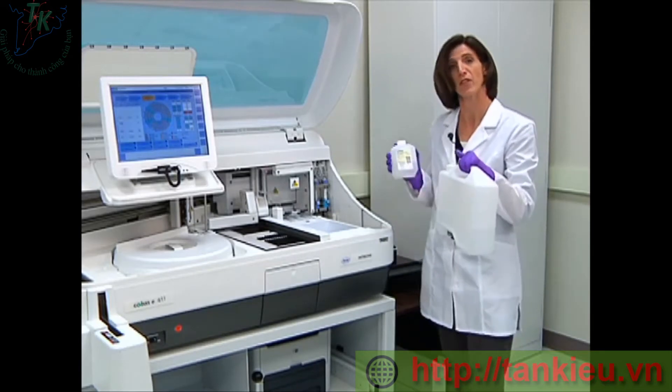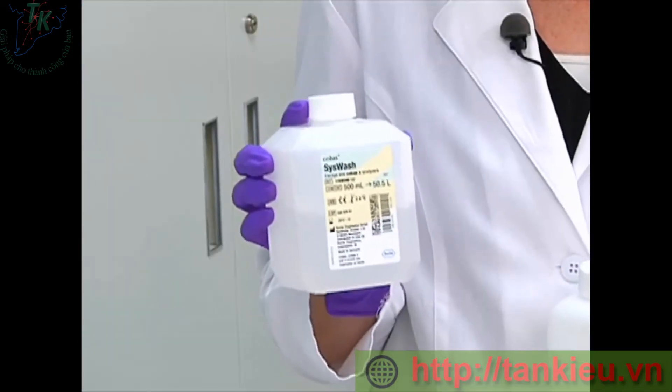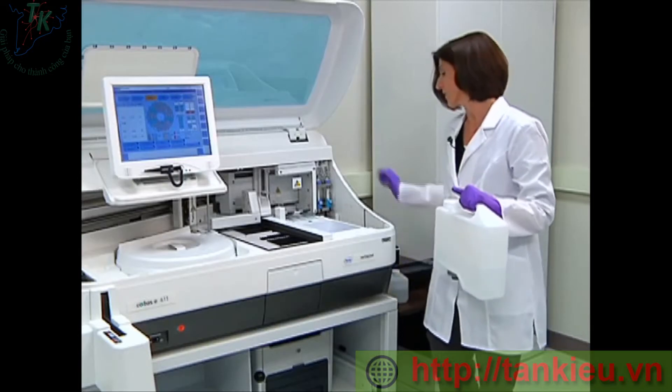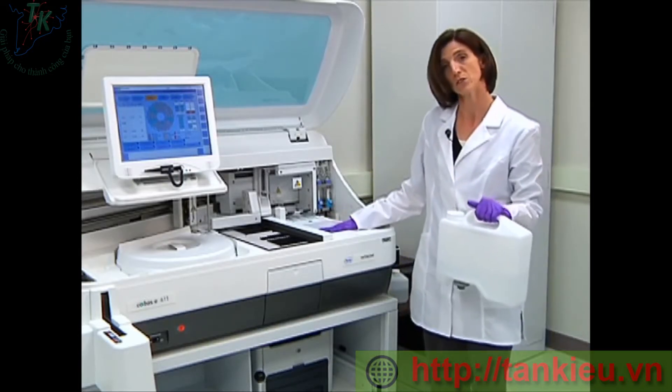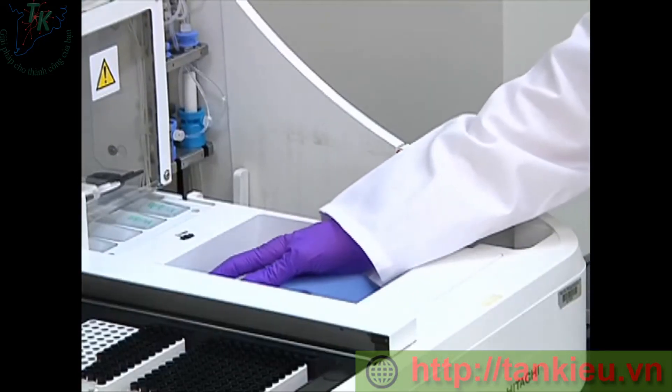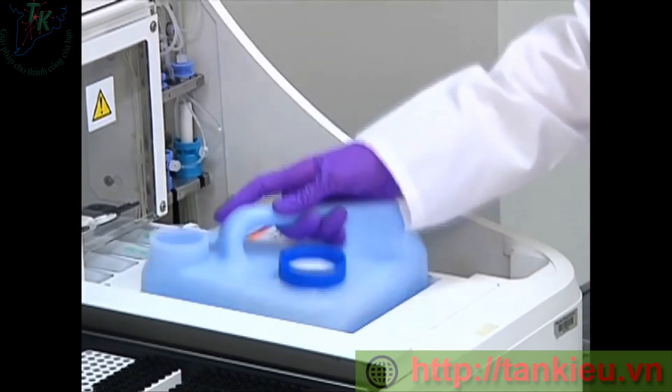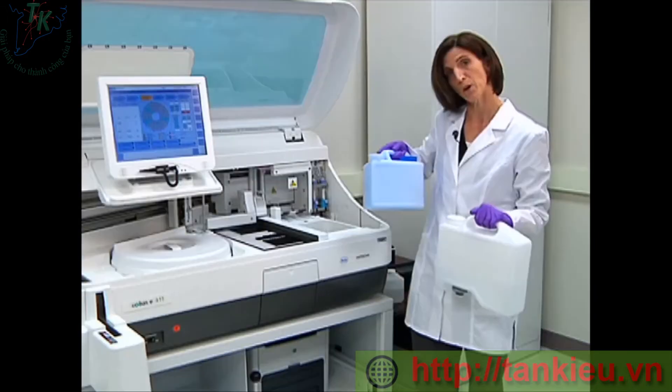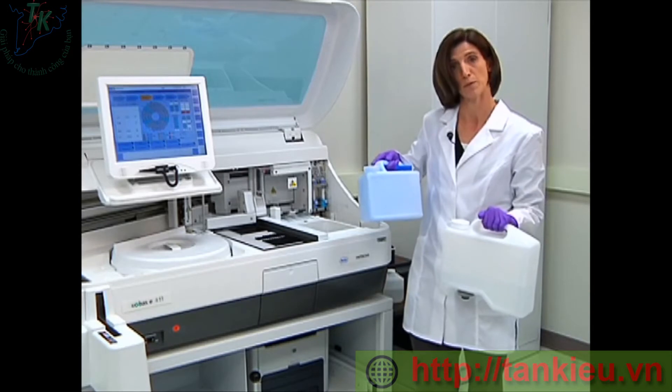Next, we would add 35 mils of a solution called SysWash. The liquid waste is located next to the water container and I simply just slide it forward and then lift it out of the analyzer. You would dispose of the liquid waste according to your lab's protocol.